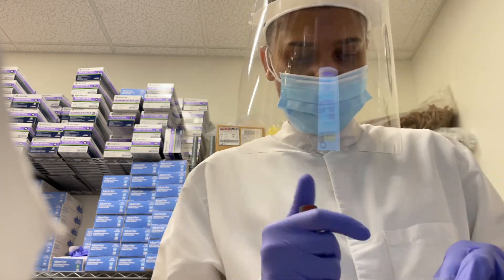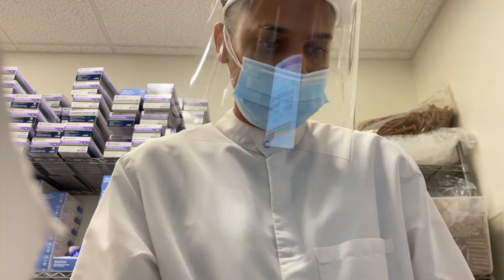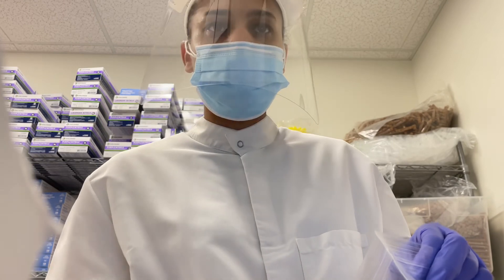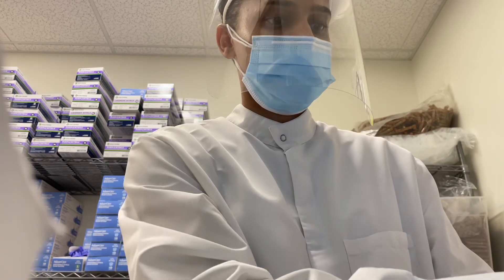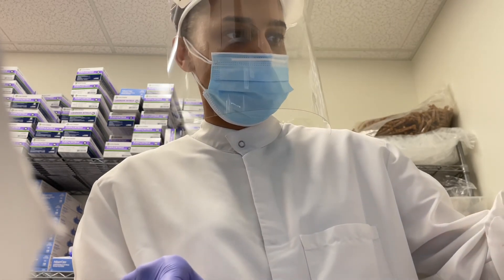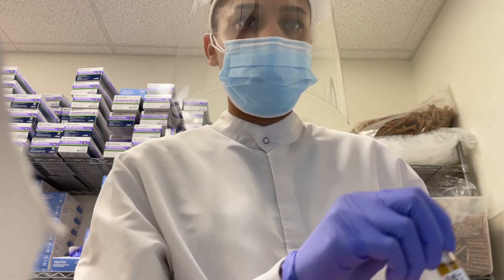My day does not end there. The lab closes and I stop drawing patients, but I still have to process all those patients I saw in a day — it can be 100, 200, or 300 specimens. All those specimens that I or my team drew, we have to go in the back and process. After I finish processing, I'm scanning all of those processed specimens and getting them ready to ship off to the main lab in a bigger city, where they go straight to our scientists.